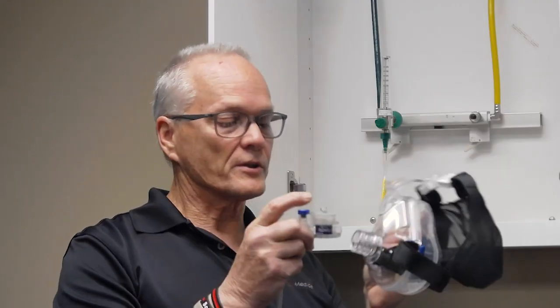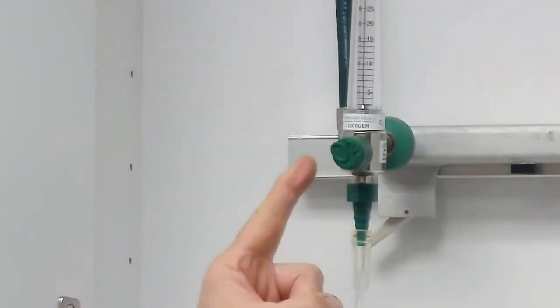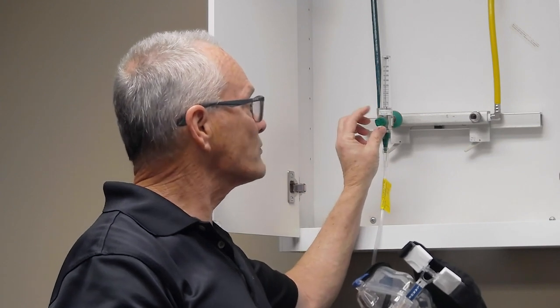To use the device, you would just attach it together — it can only go in one place — attach it to a standard regulator, a flow meter, and all your adjustments are made by adjusting the gas flow.